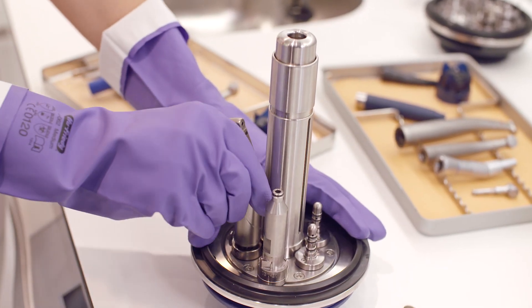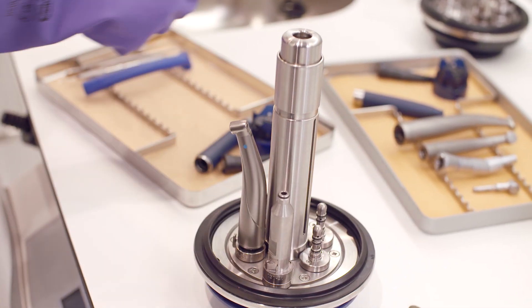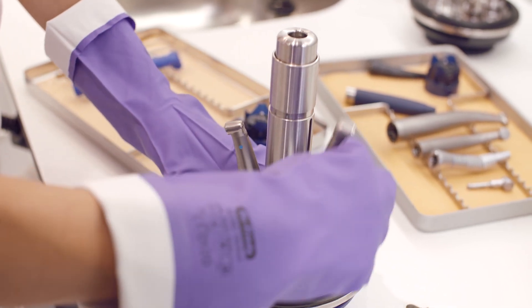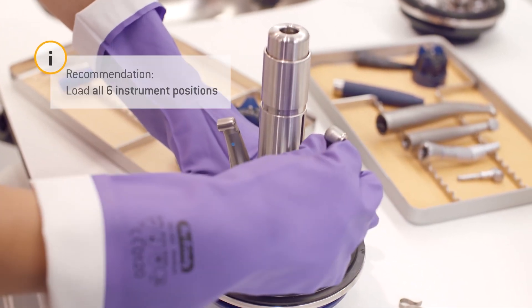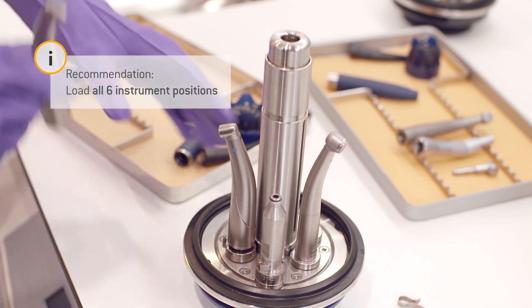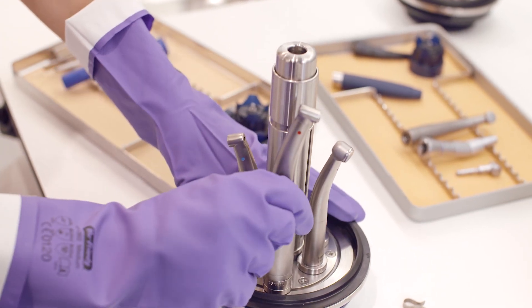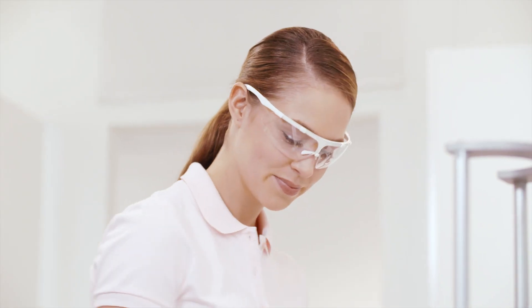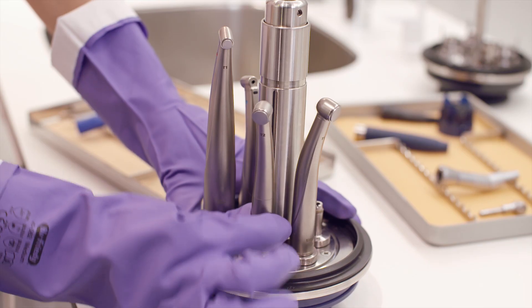The instruments are first loaded onto the respective adapters. Did you hear a soft click upon loading? This means the instruments are securely in place. In any case, you should check this by gently pulling at them.